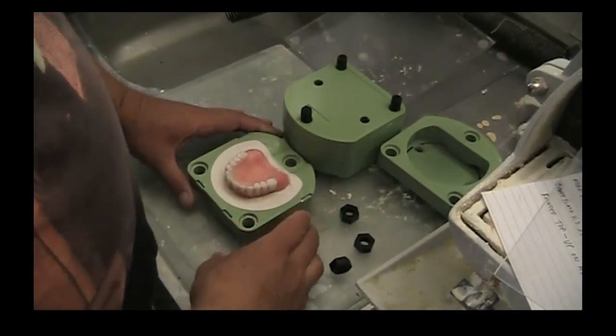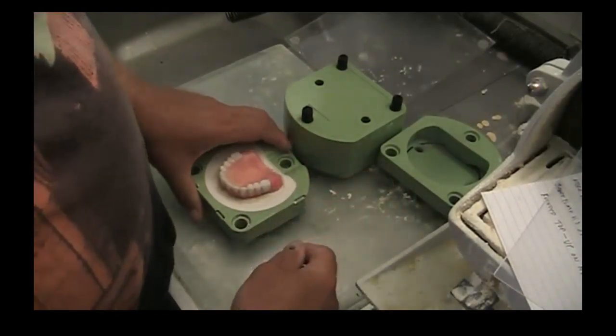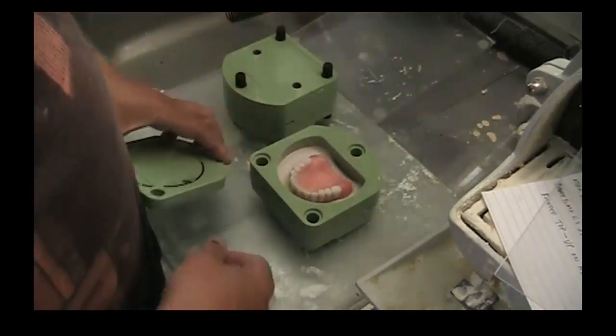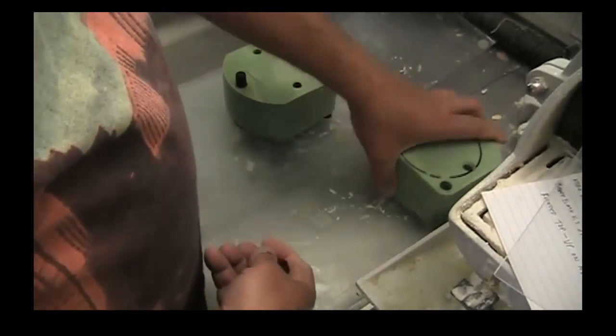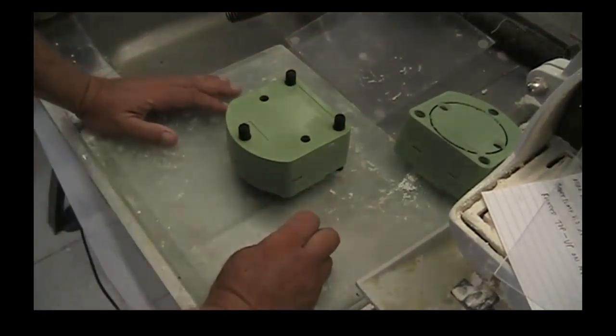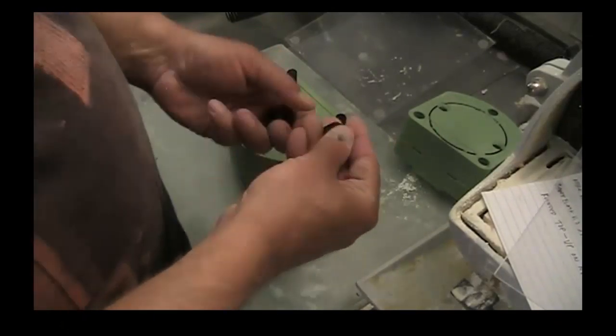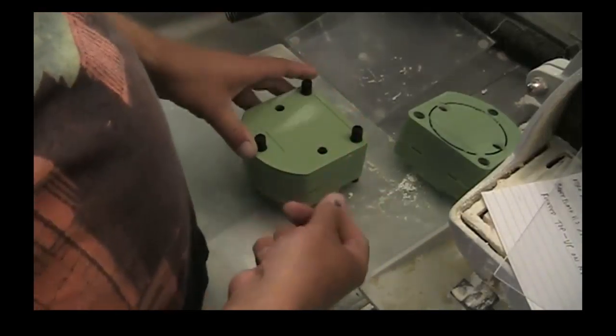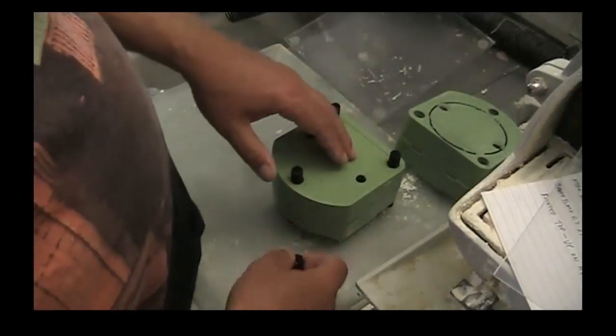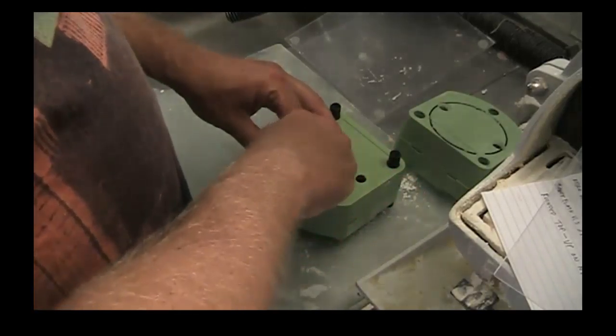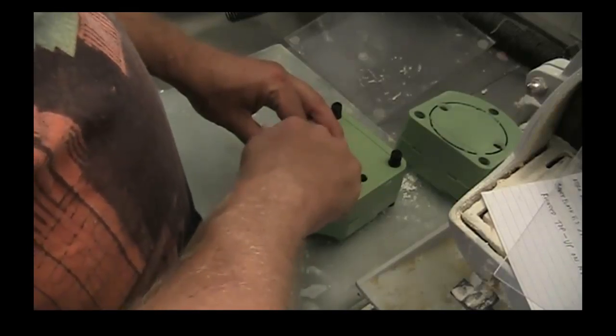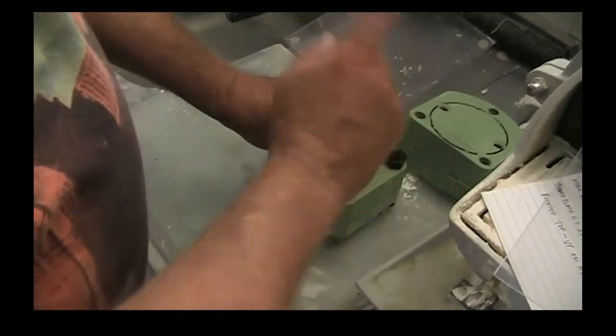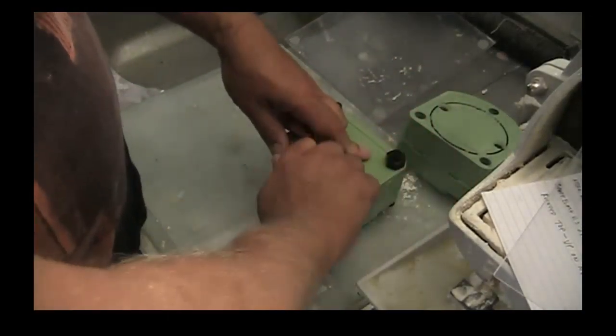Something else I wanted to mention before I move on is that one of the major complaints or issues that people had in the past with microwave flasks was that they always complained that the bolts broke or snapped. They ended up substituting those bolts for galvanized nuts and bolts, which is fine and will work, but I can give you an easier way to do it without having to switch out your nuts and bolts. People are under this misnomer with these flasks, and that is that the time to put the nuts on is when it's under compression in your press. In other words, when you have it at 2000 psi and you're holding it for a minute or two, at that point while it's under pressure, take and turn the nuts with your fingers finger tight, just finger tight. That's all you really need to do.